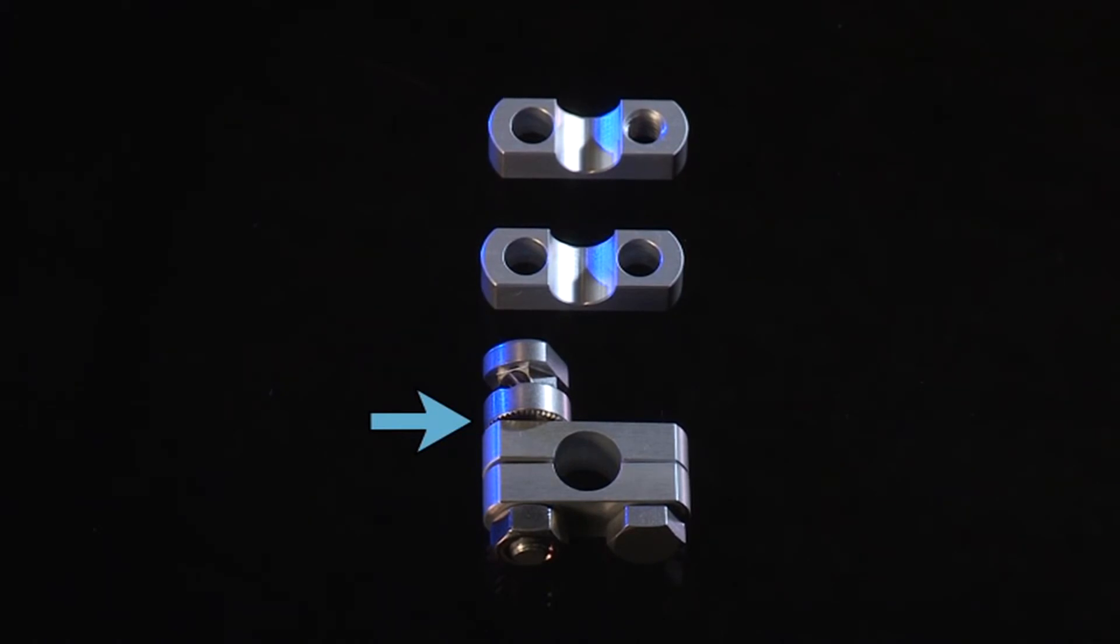This positive retention is unique to the SK ESF clamp design, eliminating any possibility of pin bolt slippage in relation to the external connecting rod while functioning at any desired pin angle.